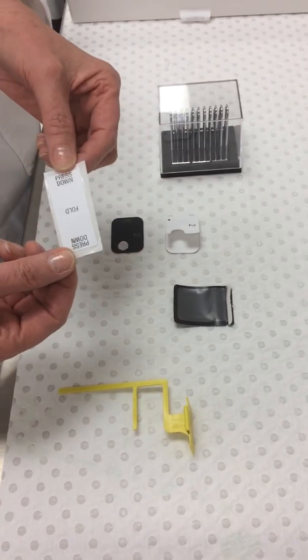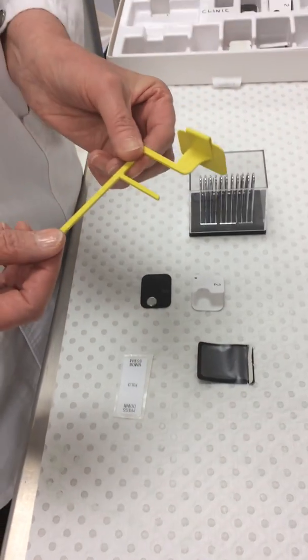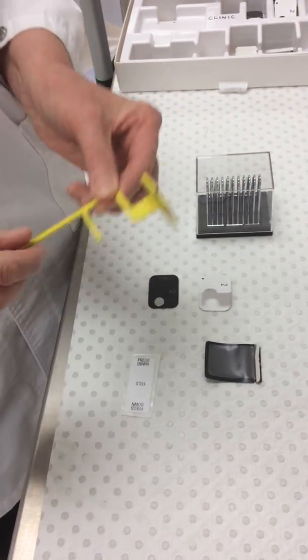One is the stick-on cardboard tab and the other one is a quick bite, which is both a holding and an aiming device.